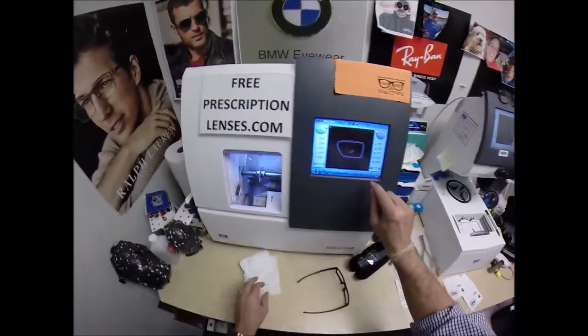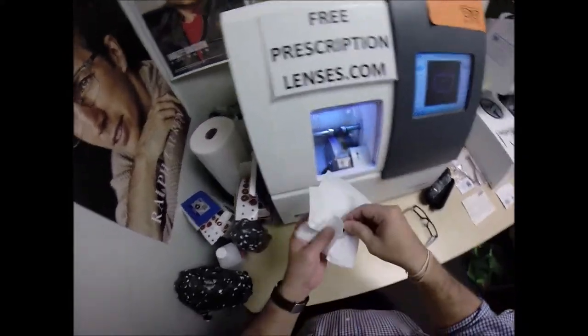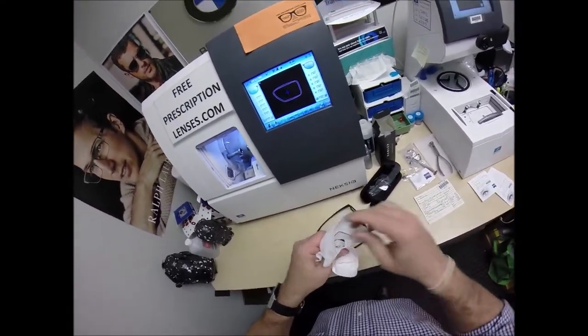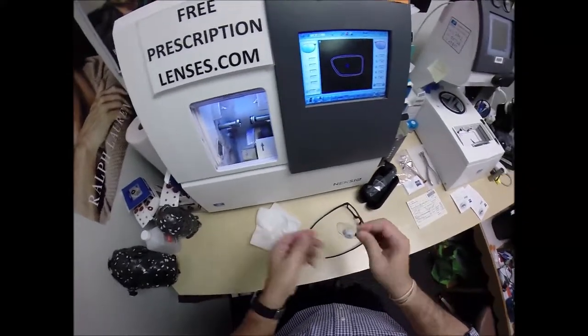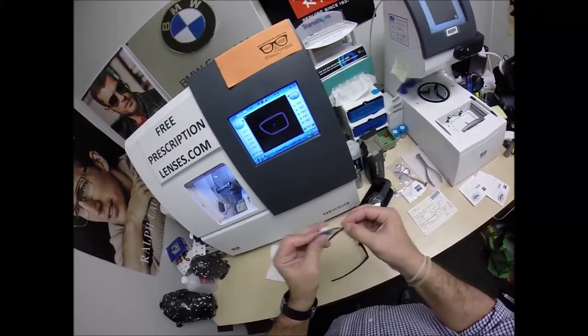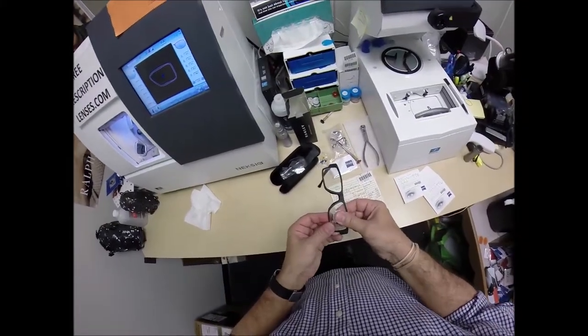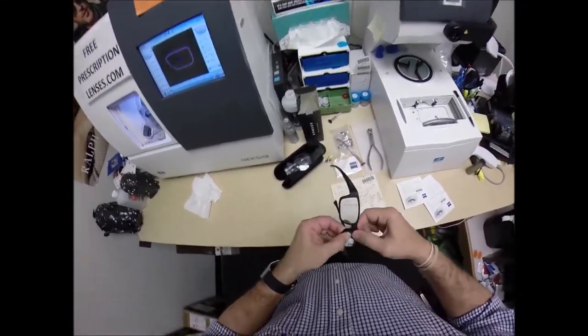All purchases are tax-free. North Carolina, my home state, considers eyeglasses a medical device. There is no tax on medical devices. I just want to run my thumbnail and get all the optical sawdust off. If you were to buy glasses from any other state or your home state, there's a very good chance you would have to pay tax.